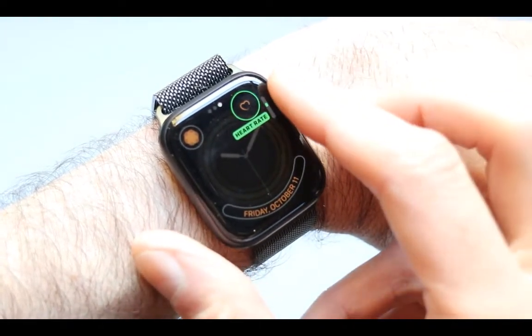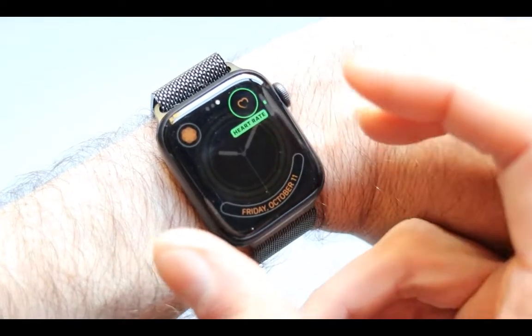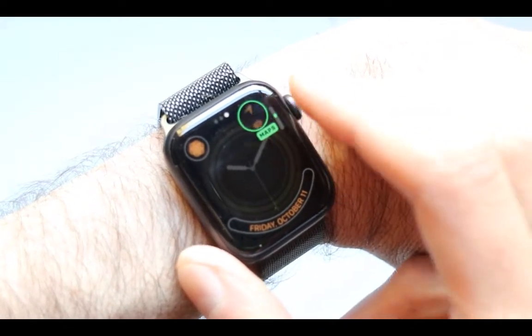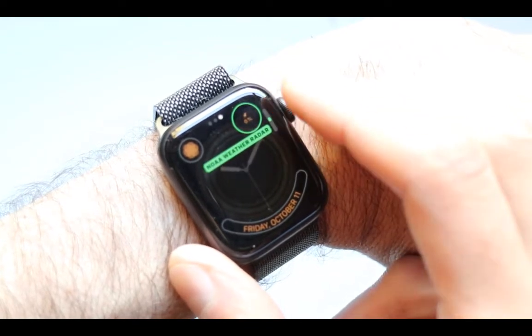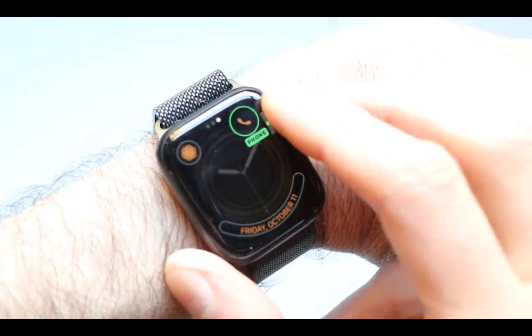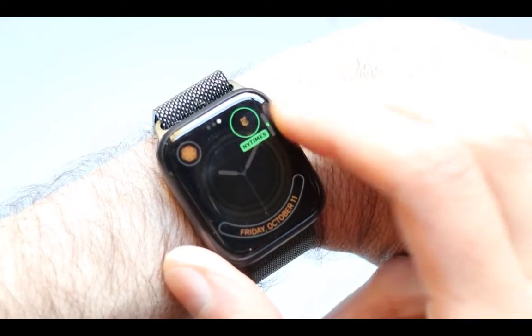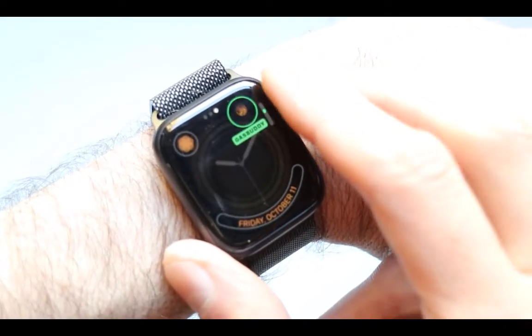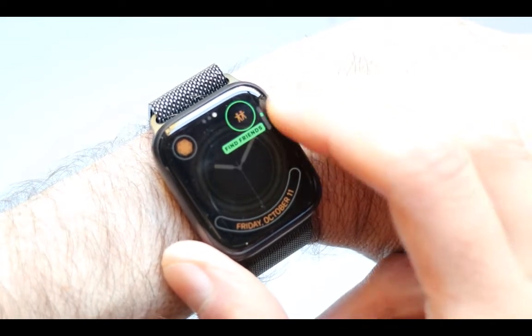Mine is already set to heart rate. If yours is not set to it, go ahead and scroll through until you have something that moves to the heart rate or, more importantly, the EKG one — that's the one we really need. So let's go through this. On this side it's going to show exactly what we are finding. We are going through the EKG, which starts with an E, so scroll until you get to the E section.